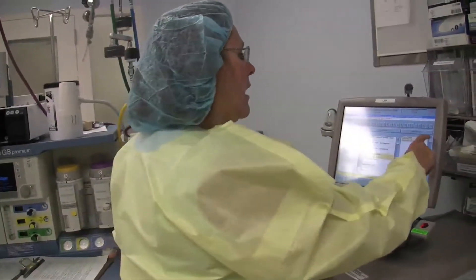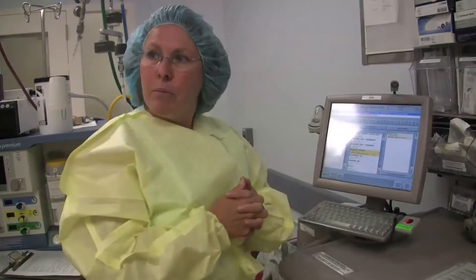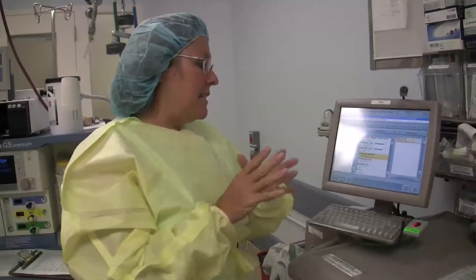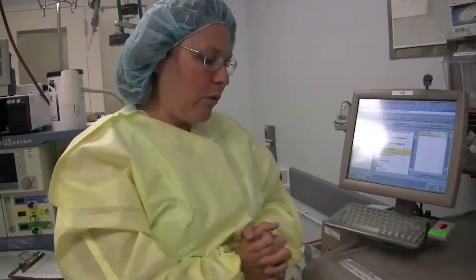So I'm going to choose a morphine, and I only want one. If I wanted more, I could adjust the quantity — which refers to how many vials I'm going to take out. I only want to take out one, because this system no longer allows me to cancel. I cannot say oops, I made a mistake. I have to go ahead and take that medication.